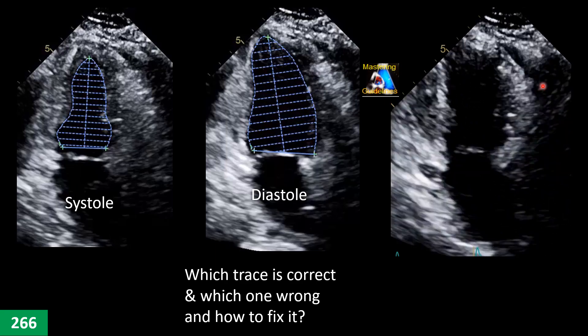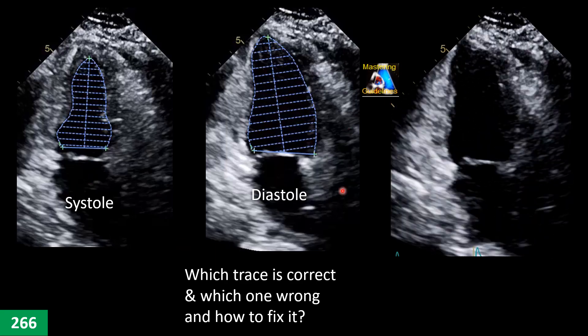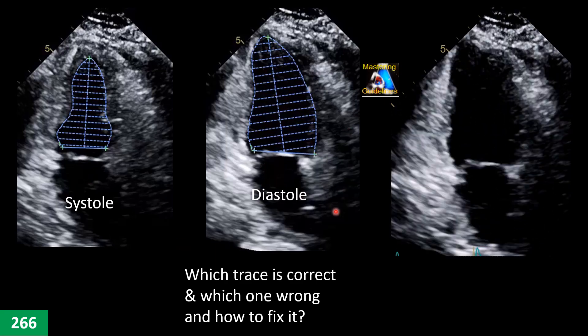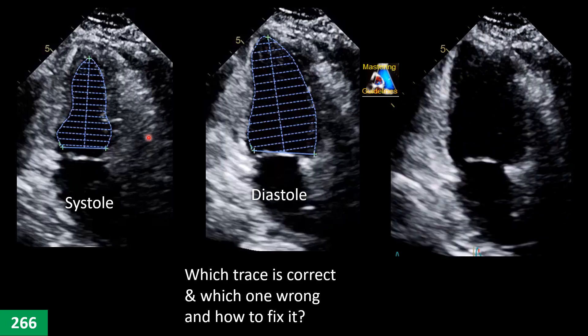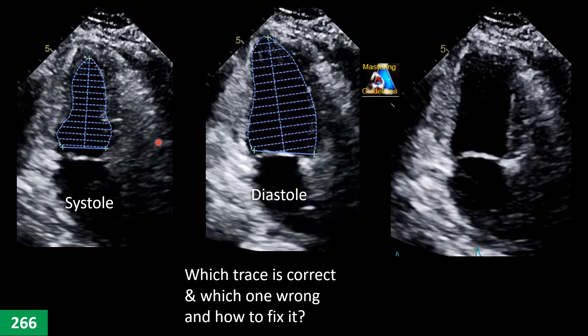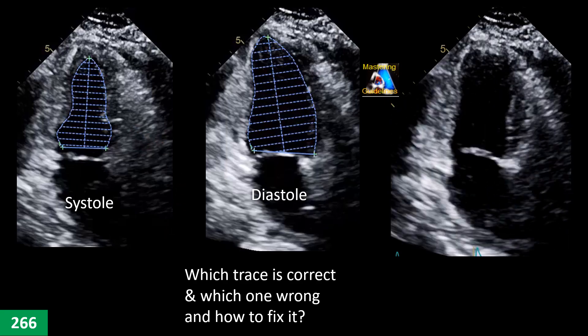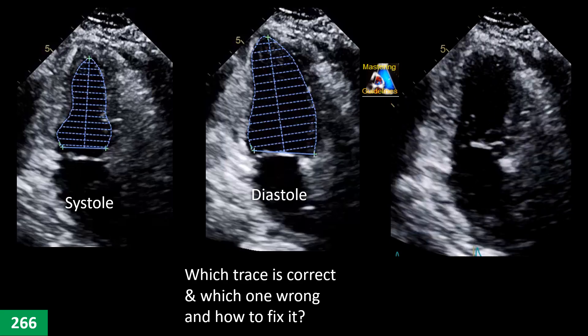Here we have apical two-chamber, diastole and systole. Which one is not correct, which one is correct, where is the mistake, how do we fix it, and what is the correct tracing?